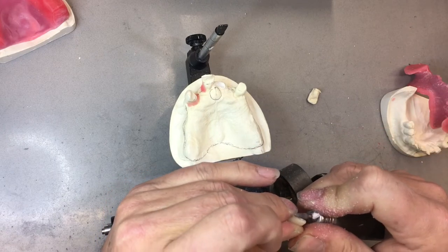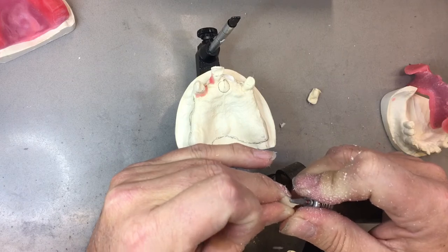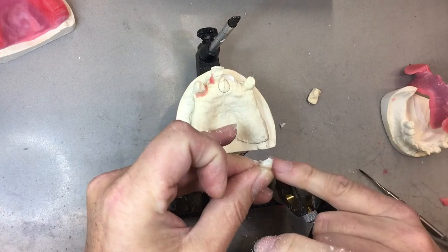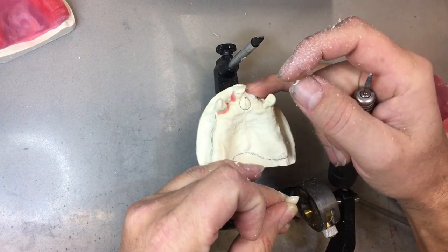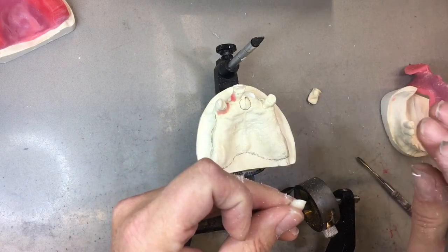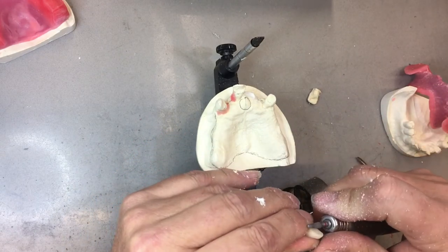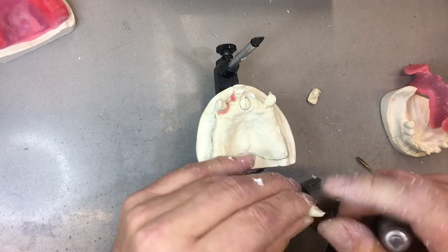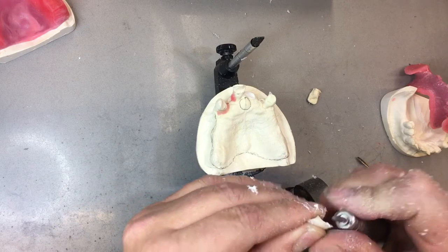The biggest thing I see in dental laboratories or denture clinics is that people order the teeth and these denture teeth have necks on them. While the patient didn't lose any bone — in most immediate dentures — a lot of the denture teeth are ground almost to paper thin. We have to create the space. This case I've given you, I've increased the vertical dimension enough so you don't have to trim as much — made it a little easier.